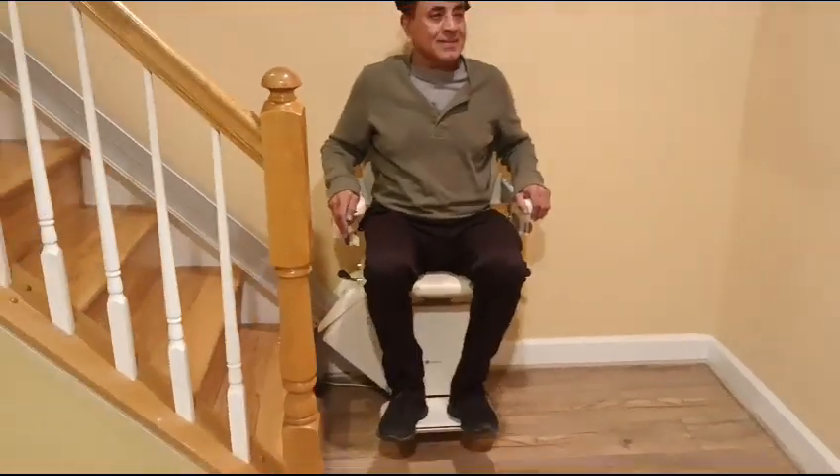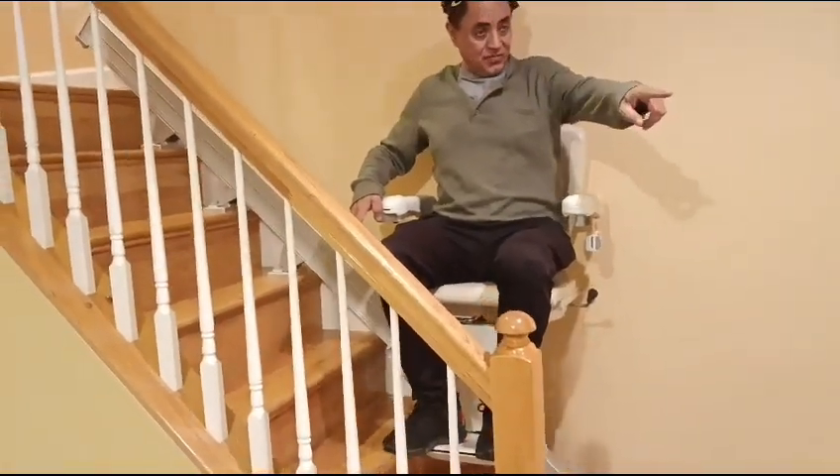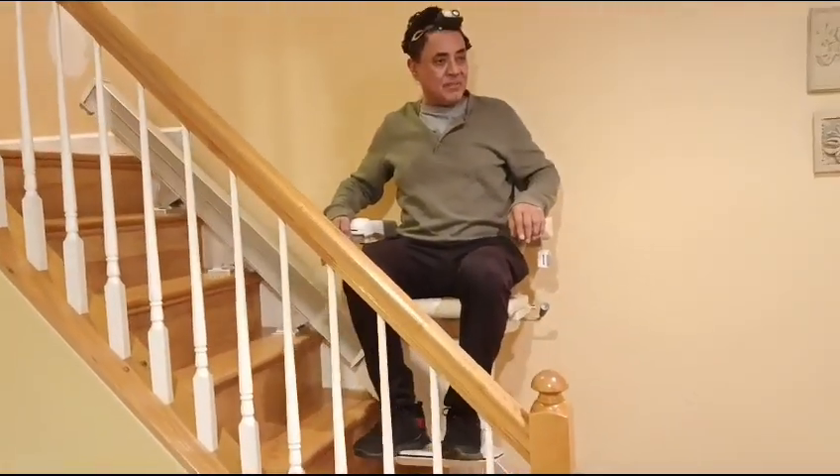Fold that down. Push the handle. And it's gone. And you just hold it. He's holding it on the handle. You see where his right hand? Now you can do it from there. Press the green button and you can stop.